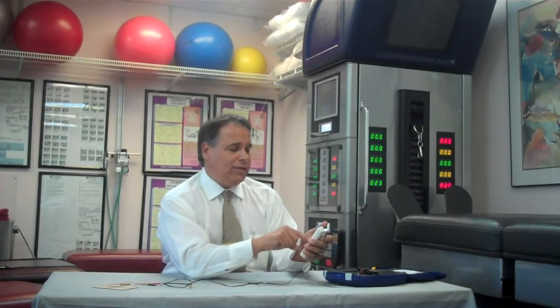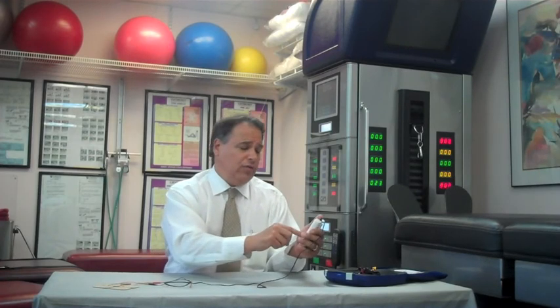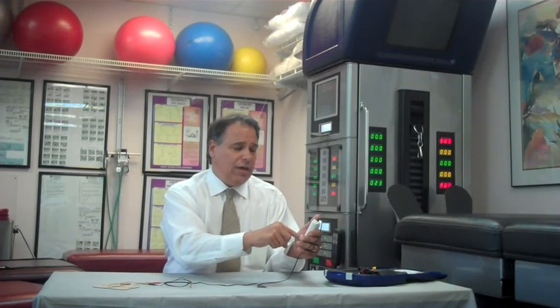Then you would wait for the duration of your treatment. Or if you wanted to stop your treatment, you would simply press the button for about three seconds and the unit will come off. Then you would disconnect your unit and put your electrodes away. Remember again to consult with your doctor before using this device. We thank you very much for visiting us at Medical Products Online.